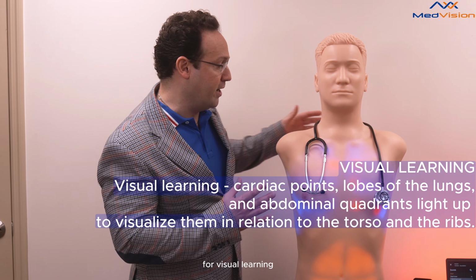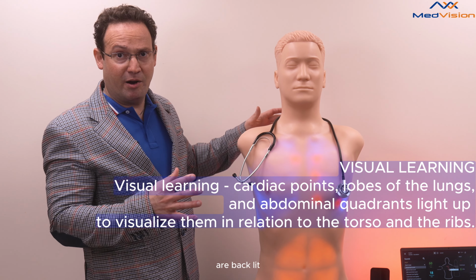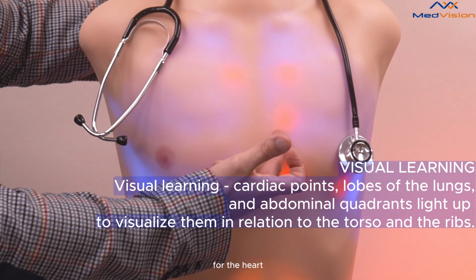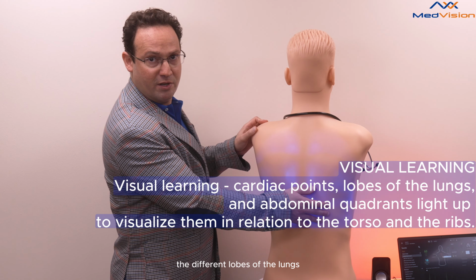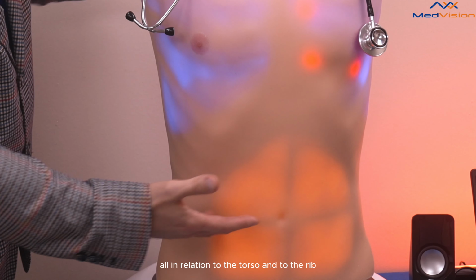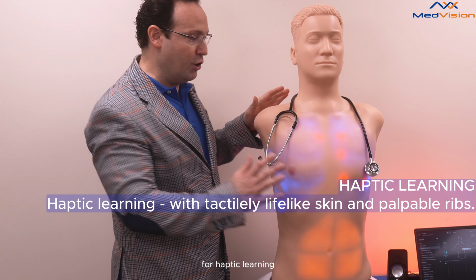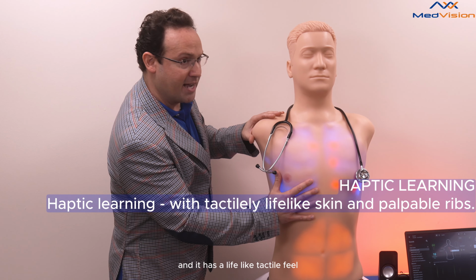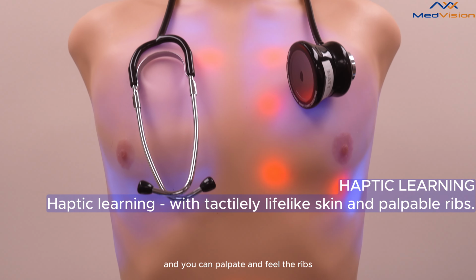For visual learning, all the auscultation points are backlit, so they light up. So you can visualize the auscultation points for the heart. You can see the different lobes of the lungs, including the fissures and the quadrants of the abdomen, all in relation to the torso and to the rib. For haptic learning, the skin is a proprietary silicone blend, and it has a lifelike tactile feel, and you can palpate and feel the ribs.